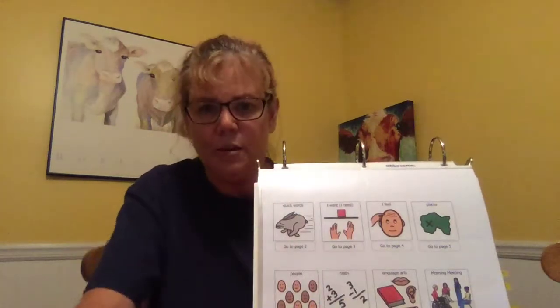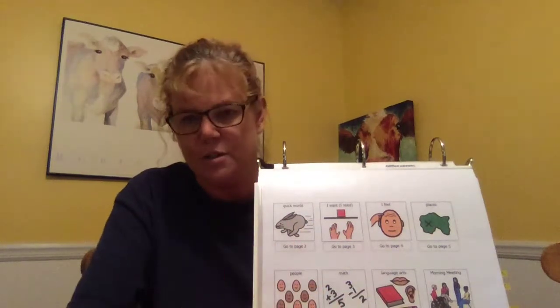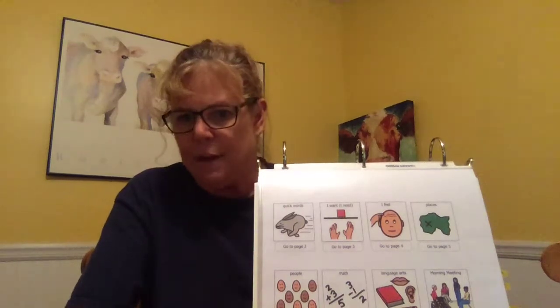I've set up a couple. This is John's homepage. So this is sort of like his table of contents. So I just set up some basic things. I have quick words, I want, I feel, places, people, math, language arts, and morning meeting are things I put in here.